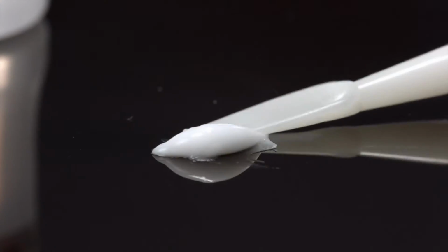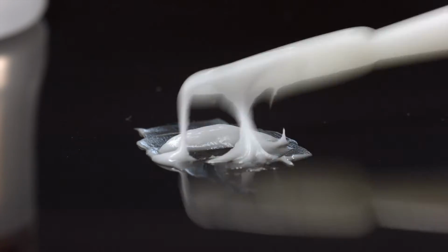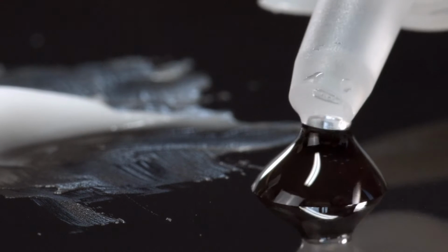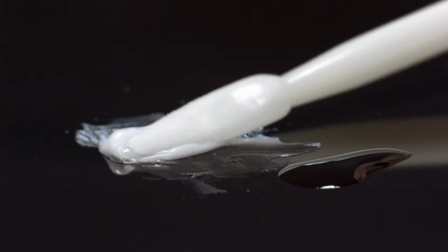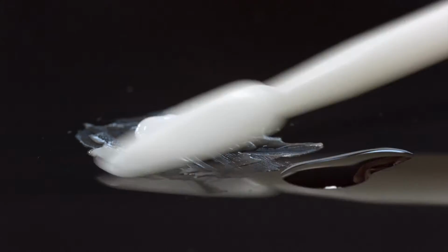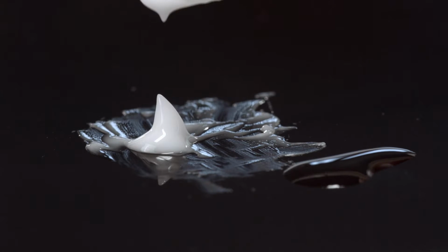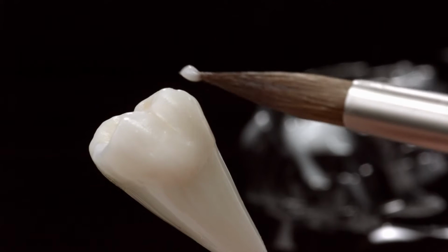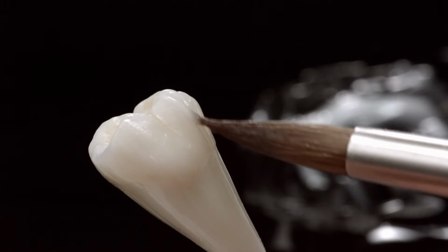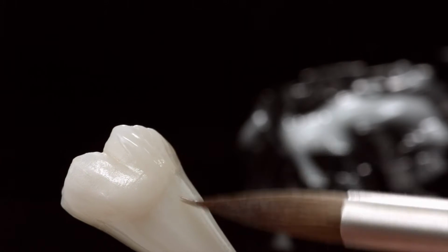Take the required amount of IPS Ivocolor glaze paste and mix it on a mixing plate with a metal-free spatula. Dip the spatula into some IPS Ivocolor mixing liquid all round or long life and mix the paste with the liquid until the material has a homogeneous honey-like consistency. Using a clean brush, apply the glaze to the restoration in an even layer. The thixotropic behavior of the glaze paste enables the application of superficial textures.